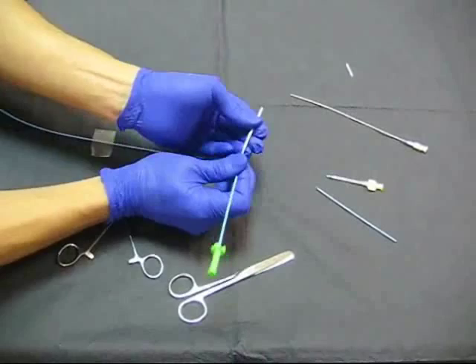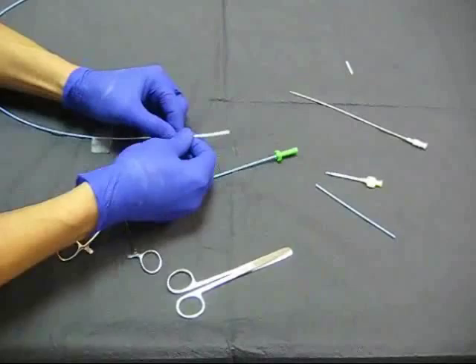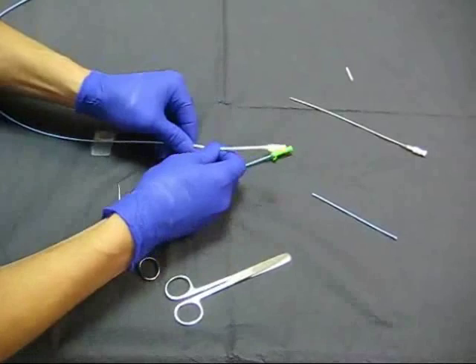After this we are going to insert the proximal part of the guiding catheter and the distal part and make them snug together. Then we will have a shortened guiding catheter.